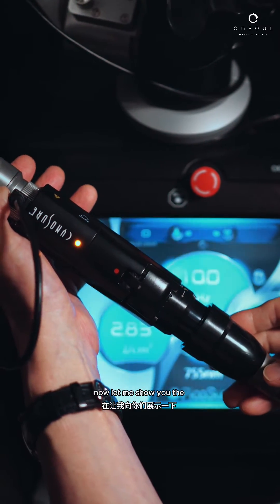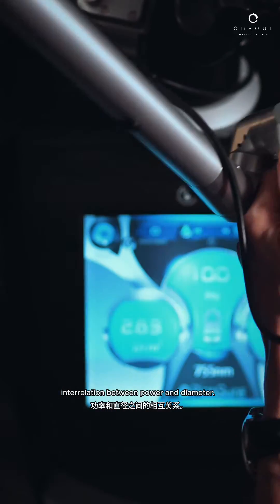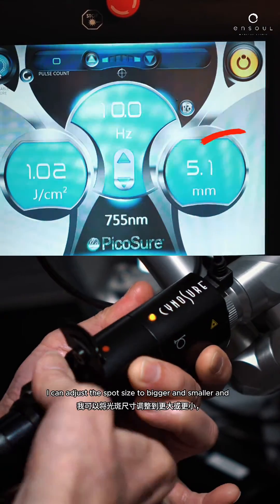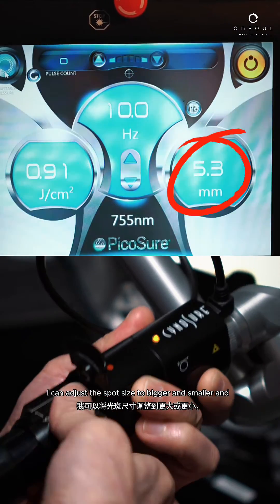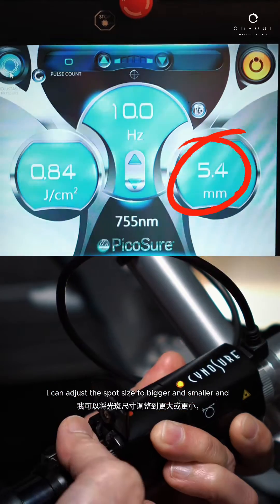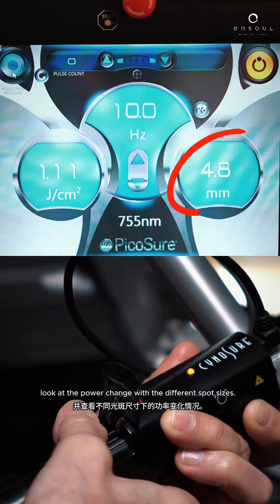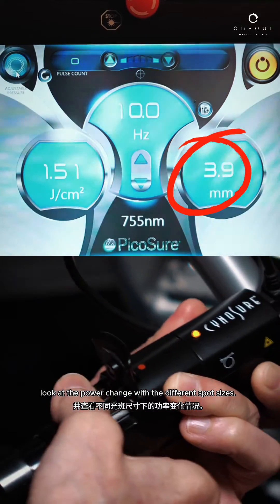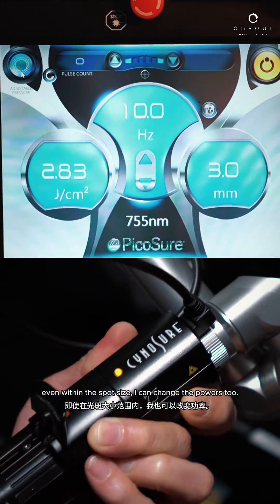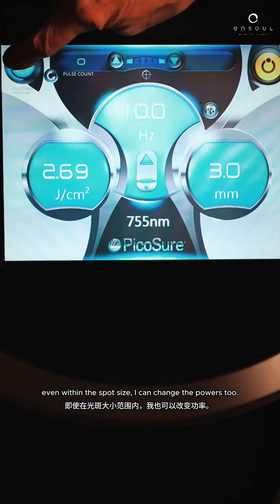Now let me show you the interrelation between power and diameter. Have a look at the screen — I can adjust the spot size to bigger and smaller, and look at the power change with the different spot sizes. Even within the spot size, I can change the powers too.